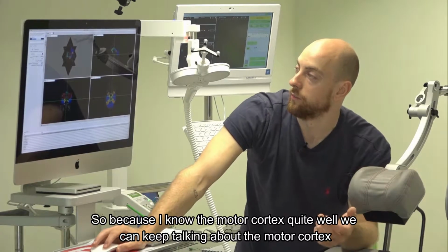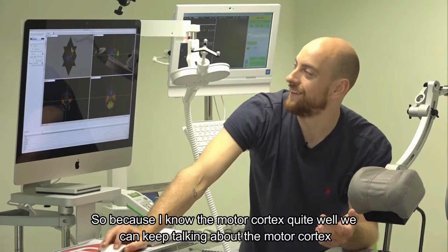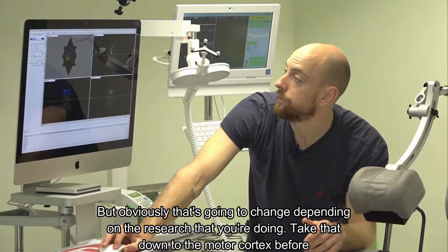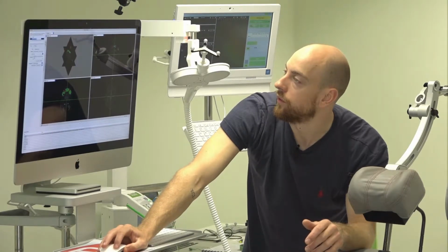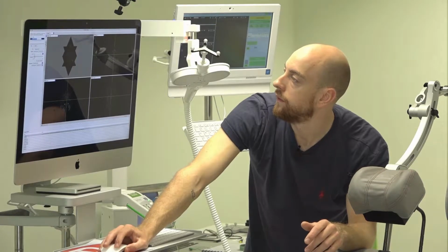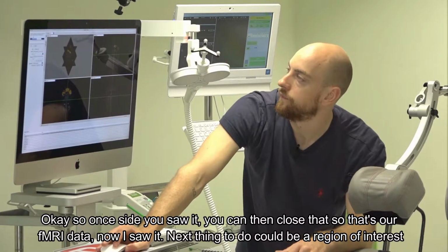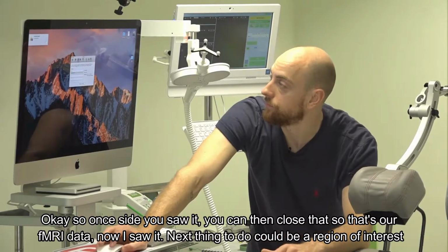So because I know the motor cortex quite well, we can keep talking about the motor cortex. But obviously, that's going to change depending on the research that you're doing. So I'll take that down. The motor cortex is number 4. Okay. So once that's sorted, you can then close that. So that's our fMRI data now sorted.